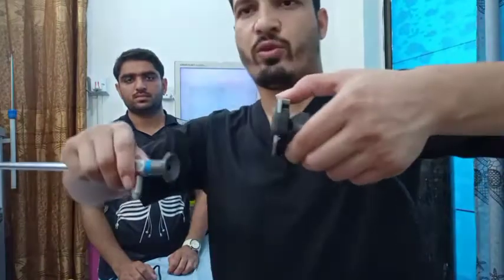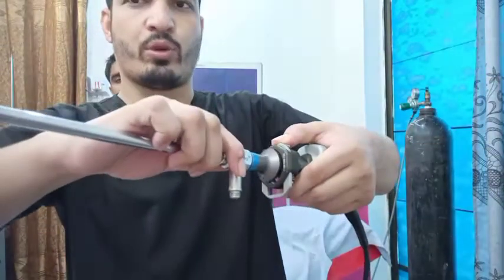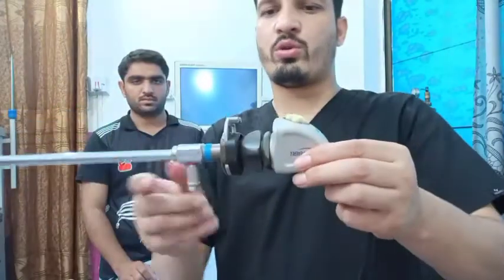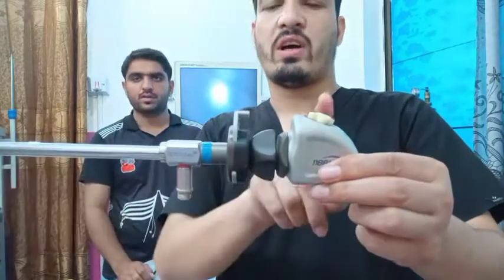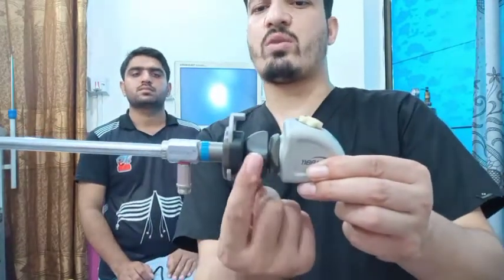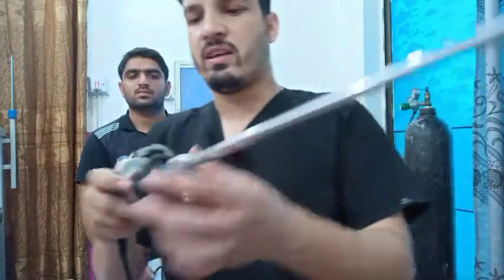Press it fully and put it here, and it will be attached. Now you might have understood that it is coupling this telescope with the CCD — that's why it is known as the optical coupler.